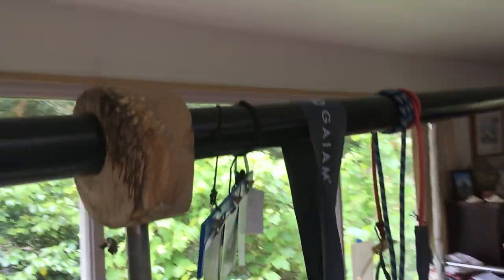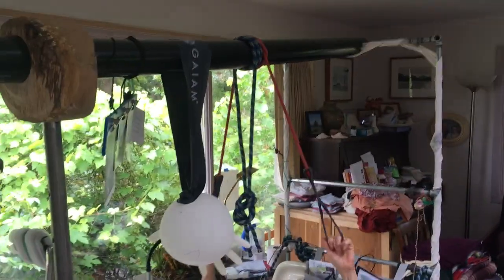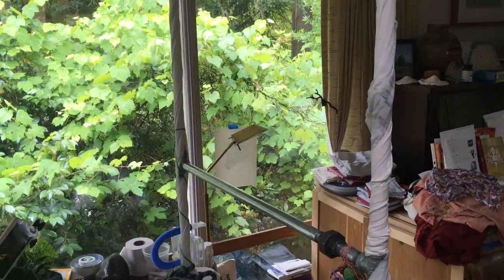The cross piece here is a piece of ABS pipe — a standard three-inch diameter ABS pipe. Basically all I've done is drilled a hole through it so this steel pipe goes right through the ABS, and it provides plenty of structural strength. It's lightweight, very securely attached with a hole at each end, and this is where the unions are really helpful for assembly. One simple pipe wrench is enough to put this whole thing together.